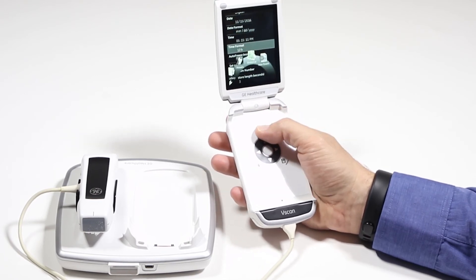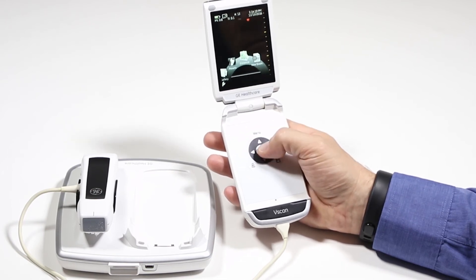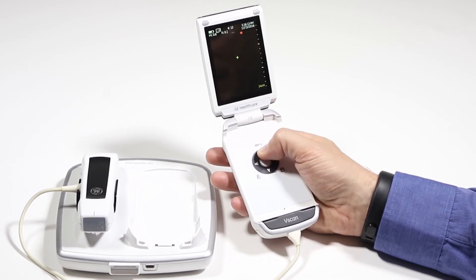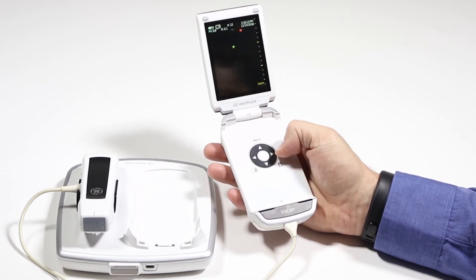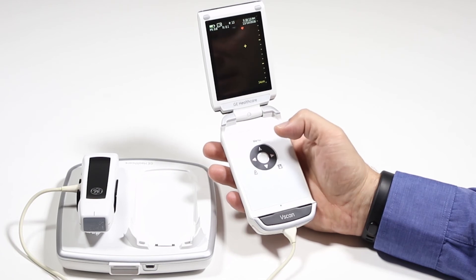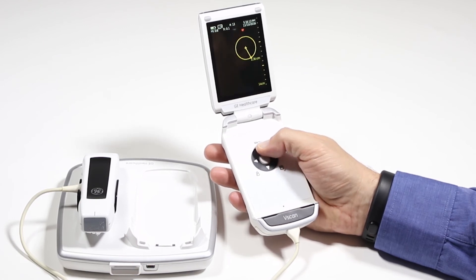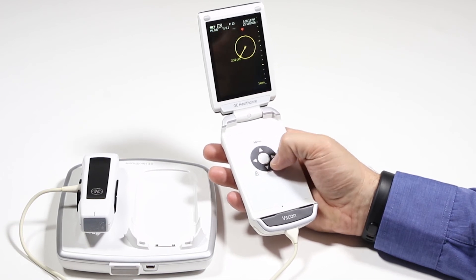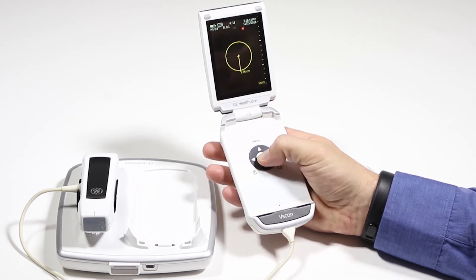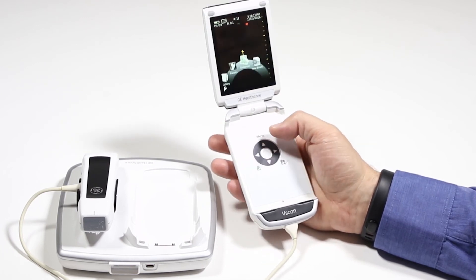Now let me show you how to make a measurement. On a frozen image, go to distance and choose distance. I'll get my caliper and can move the cursor by pressing and holding or clicking left and right keys — press and hold to move quickly, then make micro adjustments. Press center to get the second caliper and make the distance measurement. Hit set again and you've got your measurement. You can make another one, then store that image by hitting enter then store.